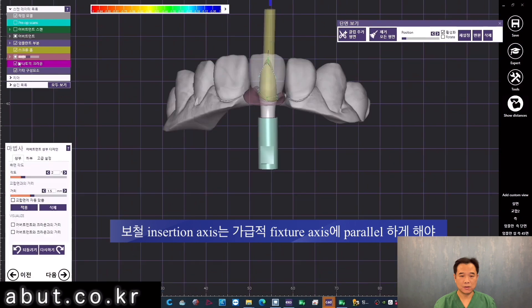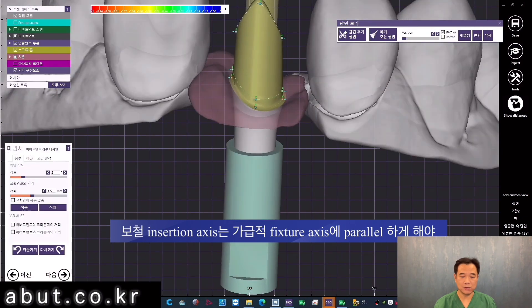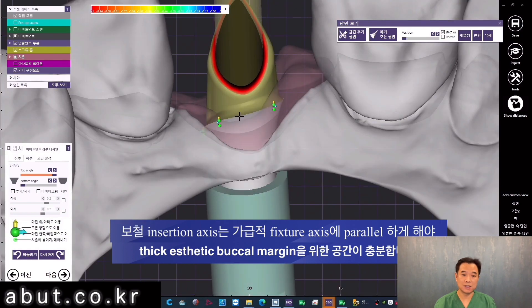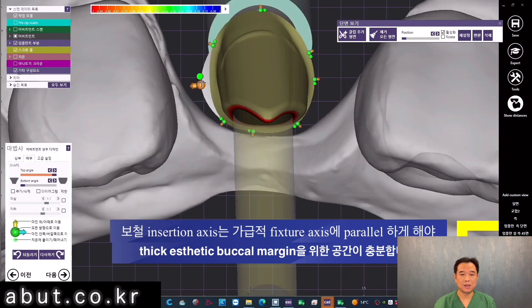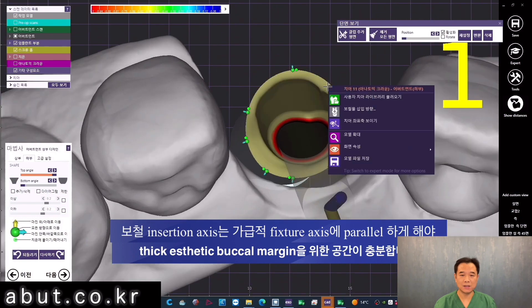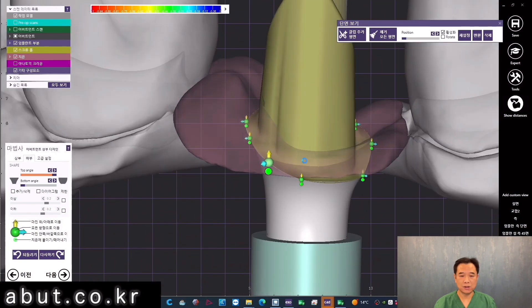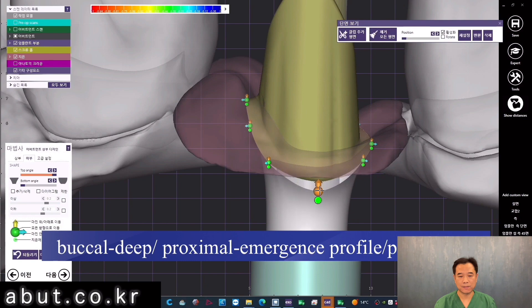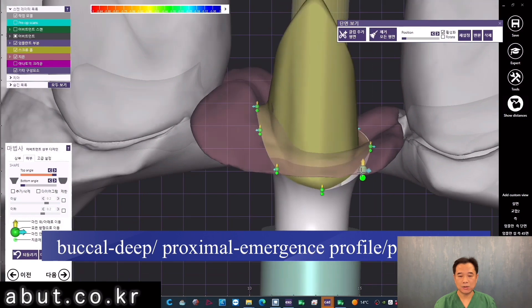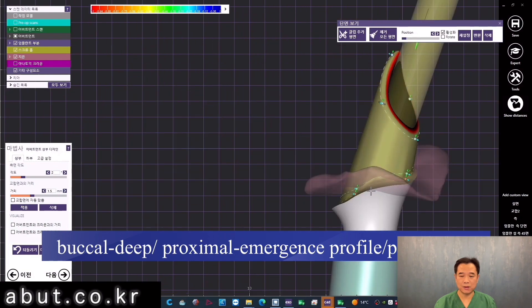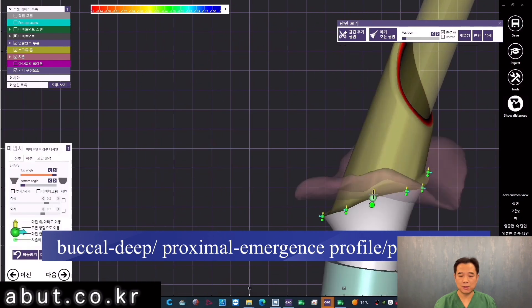In this case, the insertion axis is parallel to the screw hole instead of the fixture axis, meaning it has a 15-degree angle, which is not very ideal but still can be done without too much of a problem. The ceramic on the buccal margin will be thinner and the color of the abutments can show through. Therefore, it is ideal to make the axis parallel to leave more space on the buccal for a thicker and more aesthetic ceramic margin. For the proximal, it is better to form an emergence profile instead of going too deep subgingivally, since that can make plaque management more difficult.